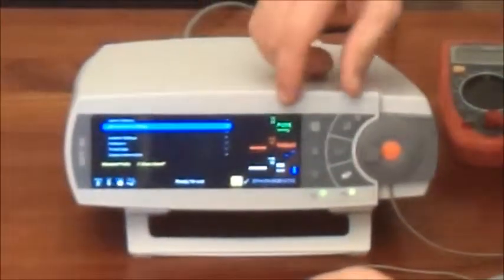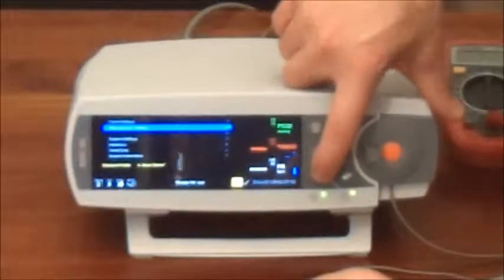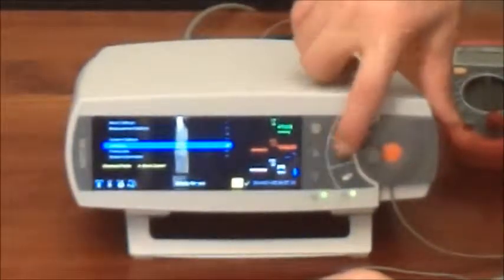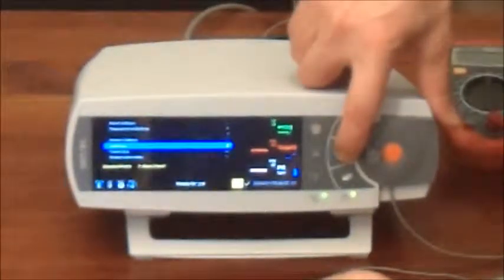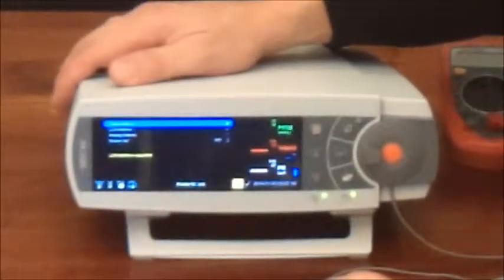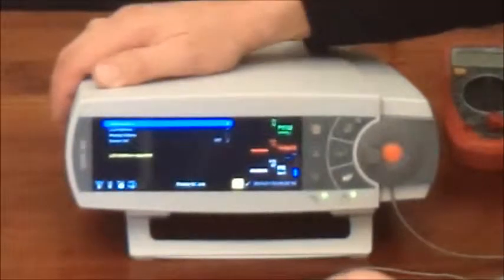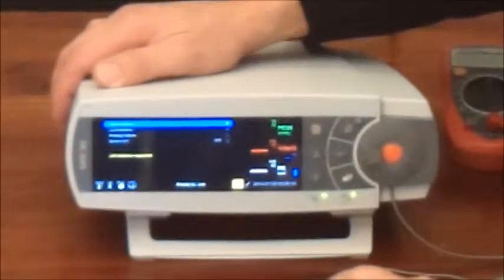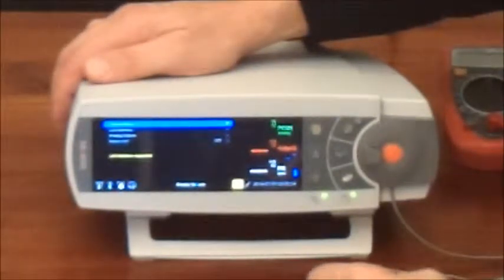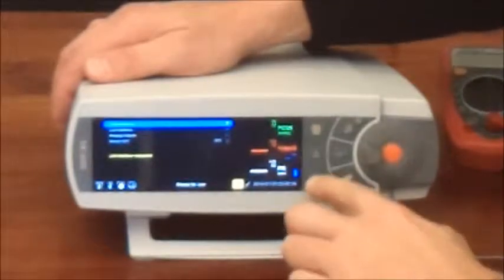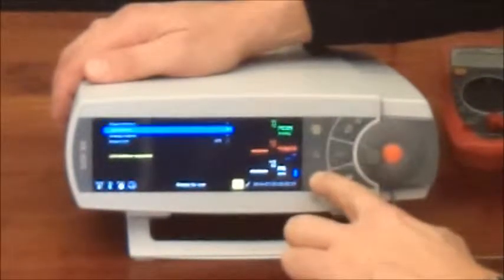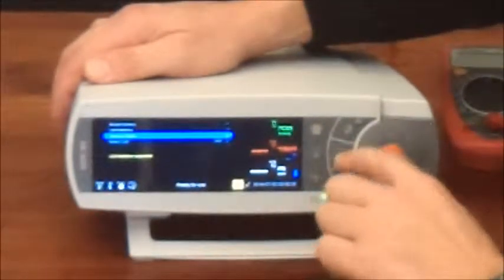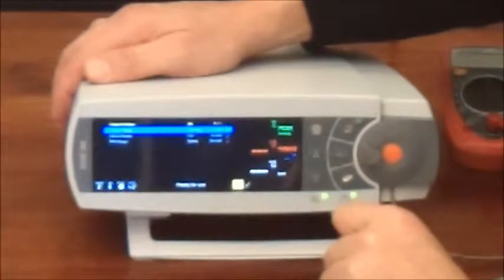Now the first thing we do is go into the main menu and you guessed it, we go to interfaces. Hit the interface button and you've got a couple of options there: you've got serial interfaces, LAN interfaces, and of course the analog outputs. Analog outputs is what we're looking for here.